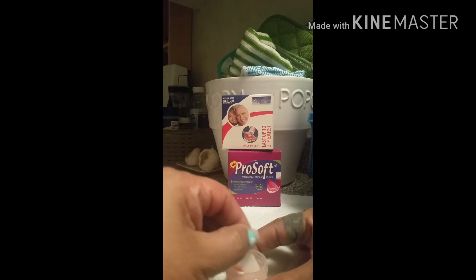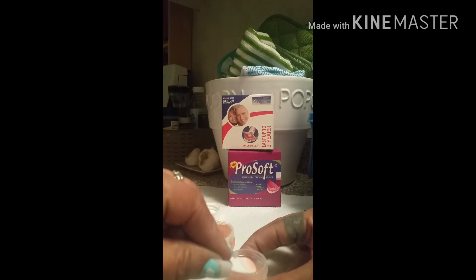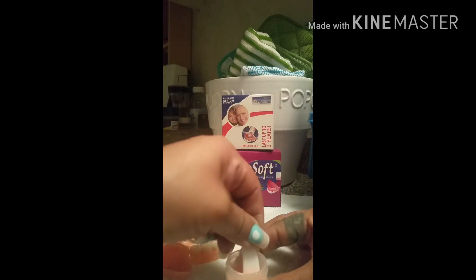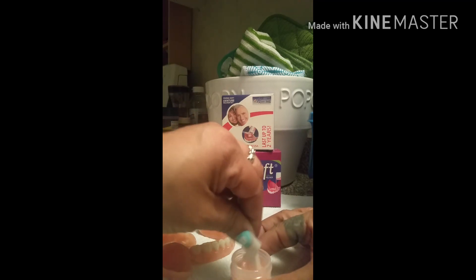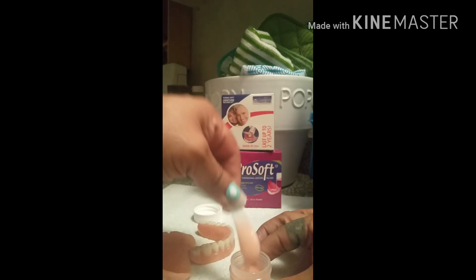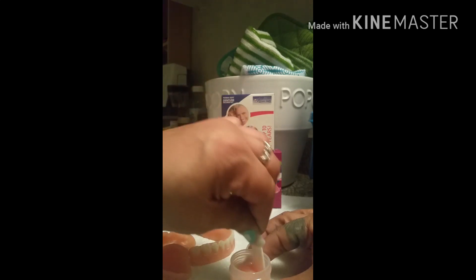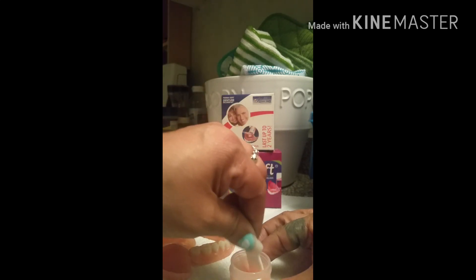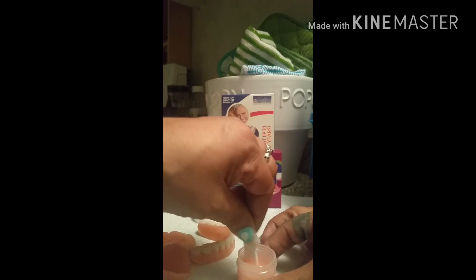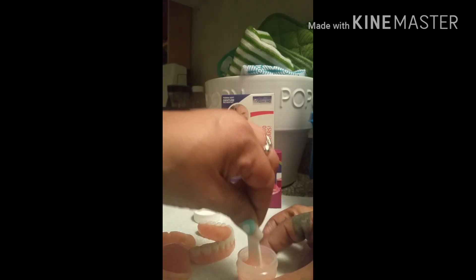Allow the mixture to gel until it becomes the consistency of honey. I want to smell it — it's not bad at all, doesn't bother me. Alright, I'm going to pour and then pause so I can get everything ready.